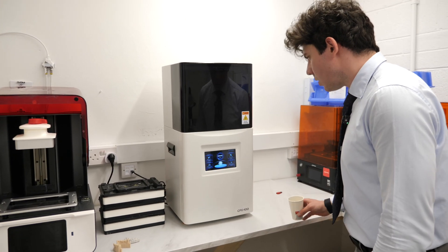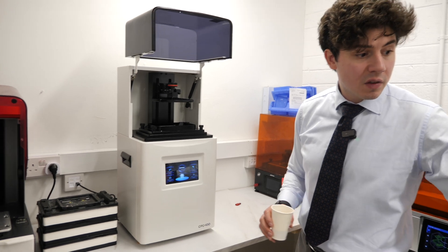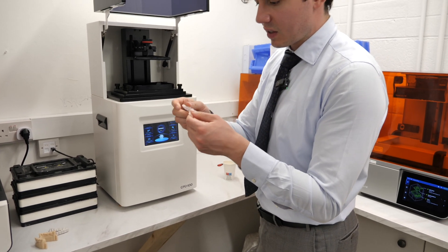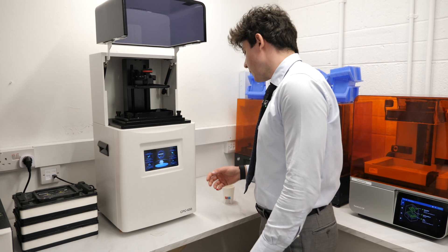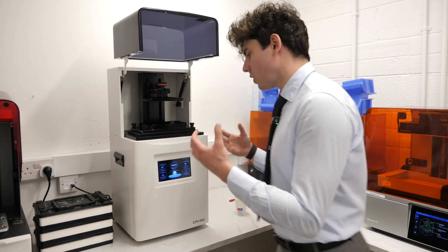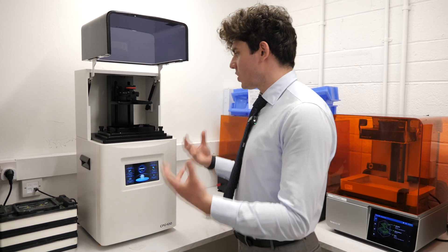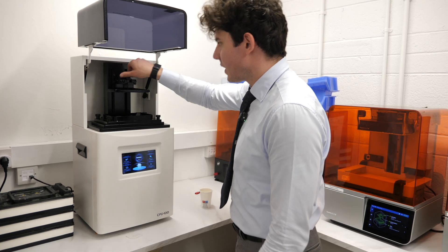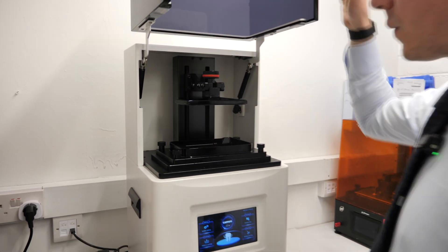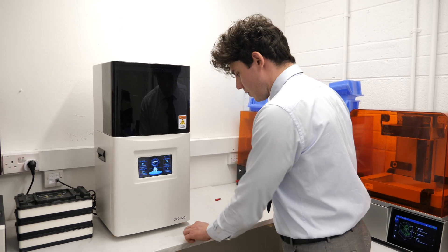This is the Cameo CPD 100. It's a very large printer because it has a ton of ventilation. It's printed a night guard here — you can see the supports which we break off so patients can wear them after post-processing. One disadvantage is the unnecessarily large ventilator, but it does allow faster printing as the large fans keep the machine cool during curing. It's a standard LCD printer with a small build plate, but at about 3,400 euros — roughly a third of the SprintRay price — it's perfectly fine for night guards and models.